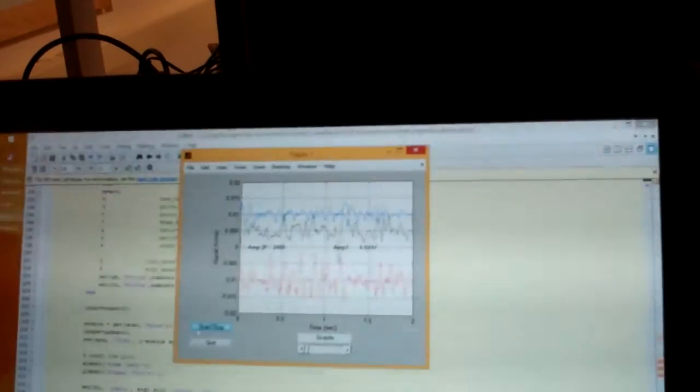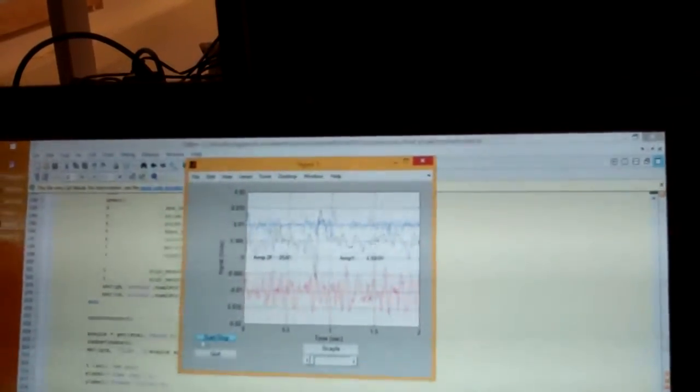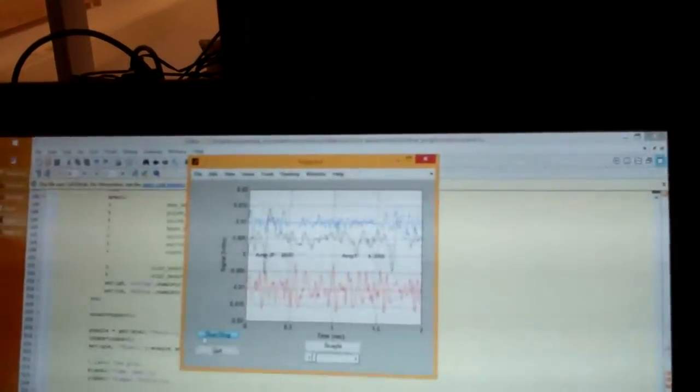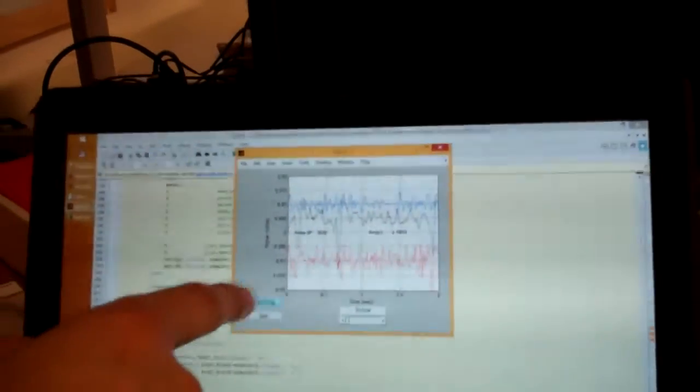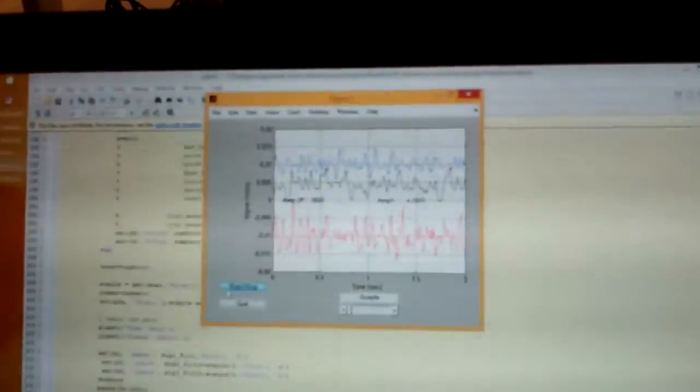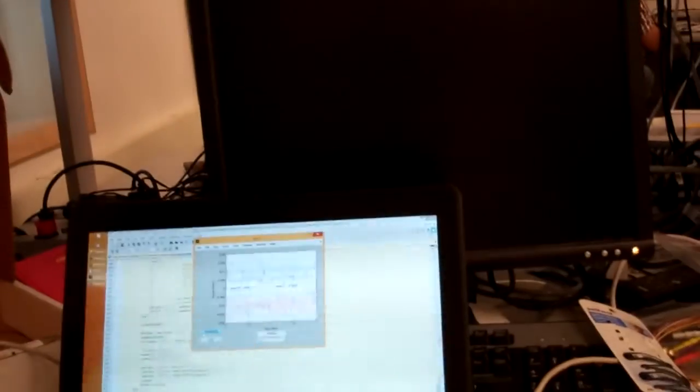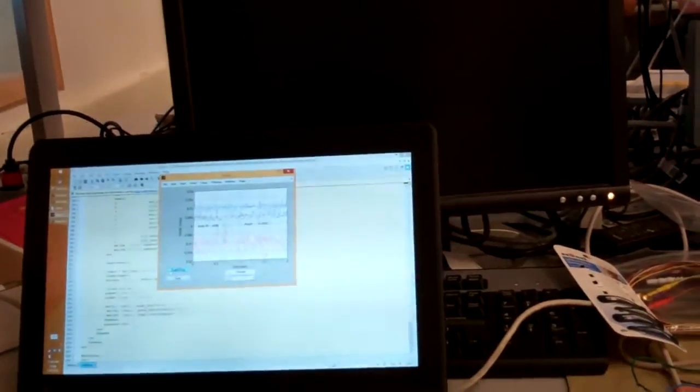So right now what we're doing in the code is we're calculating the maximum peak for the electrode at the occipital lobe, which is in the alpha range, and then we're taking the ratio of that with the RMS of the whole Fourier spectrum and plotting that over time. Okay, so you're getting some index of alphaness.